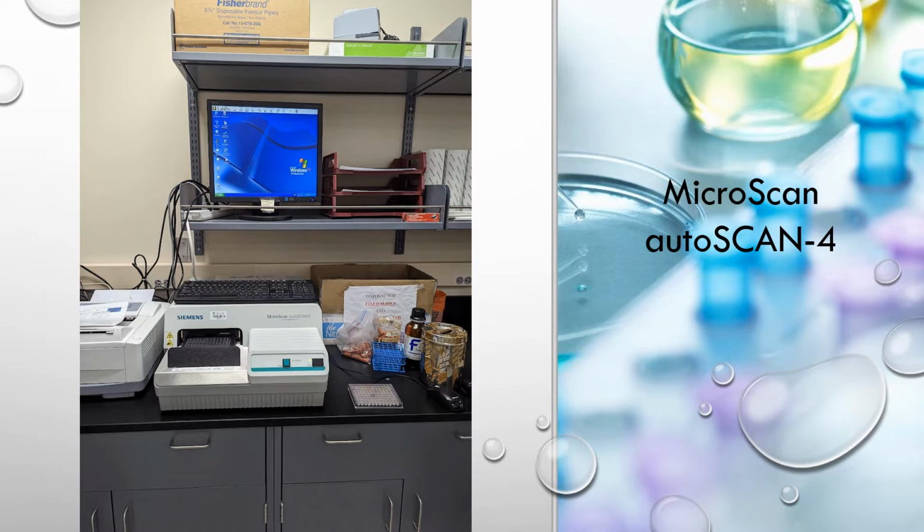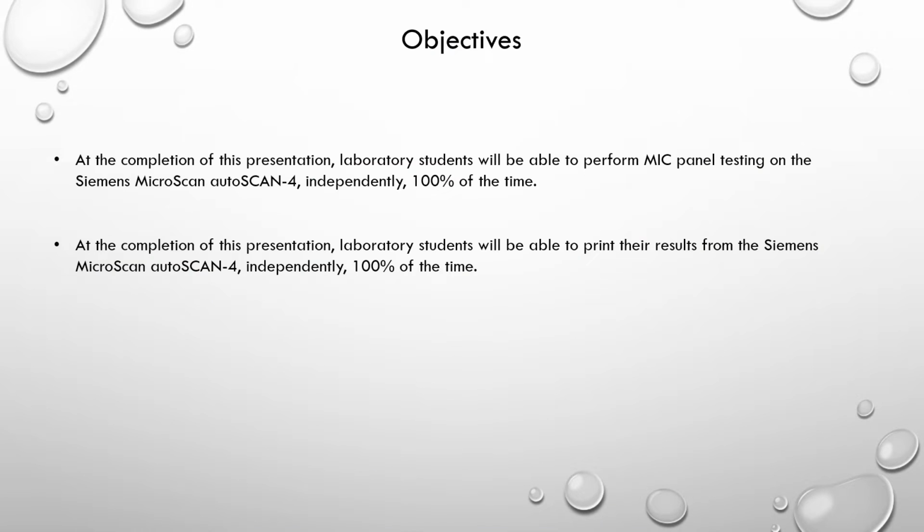Thanks for joining us for our in-service on this MicroScan autoSCAN 4 instrument. Our objectives for this in-service include, at the completion of this presentation, laboratory students will be able to perform MIC panel testing on the Siemens MicroScan autoSCAN 4 independently 100% of the time. Students will also be able to print their results from the Siemens MicroScan autoSCAN 4 independently 100% of the time.